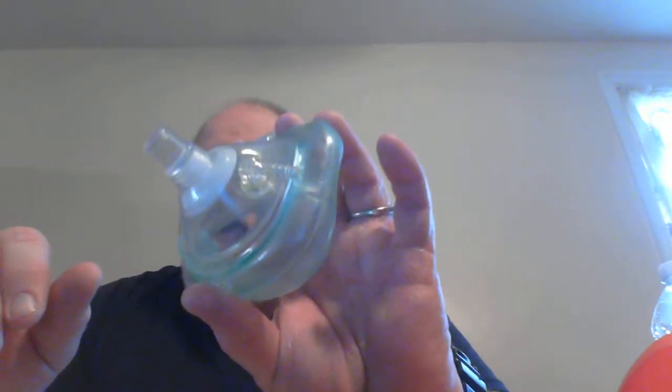This is called the CE method if you're by yourself. I'll maybe do a video on how to do CPR sometime — I need to figure out a technique to show you how to use a pocket mask on a mannequin.